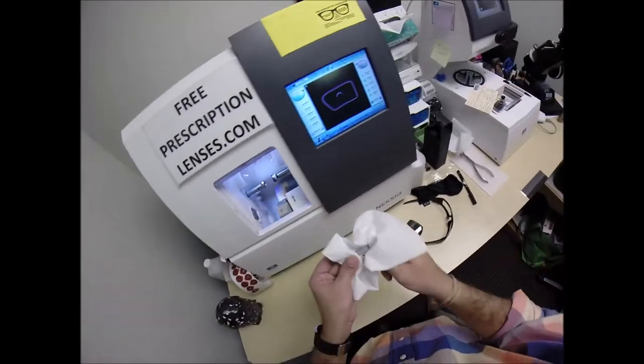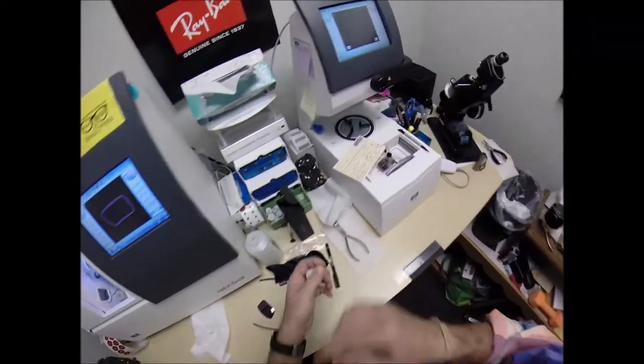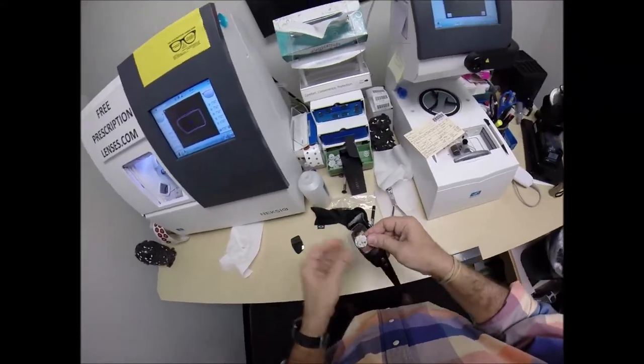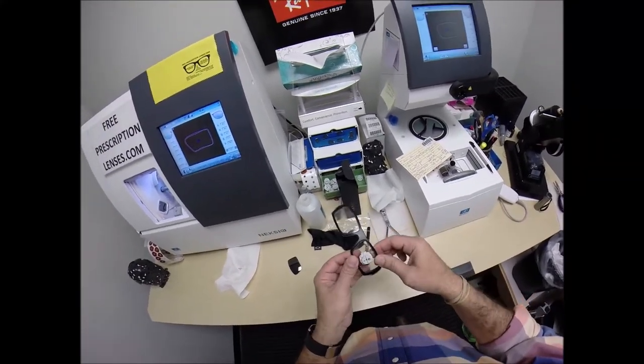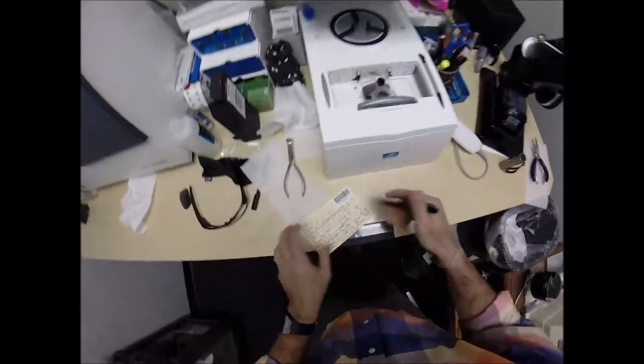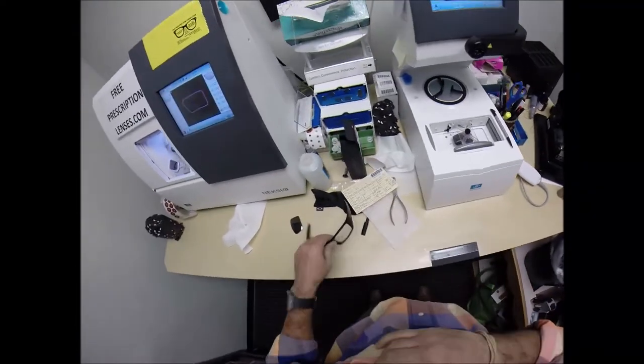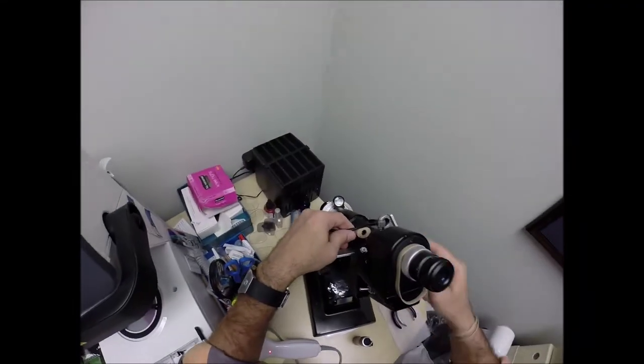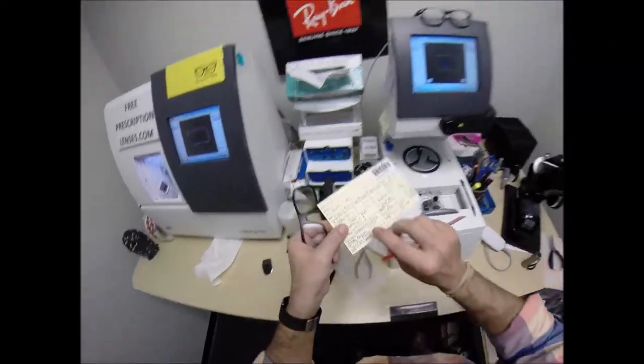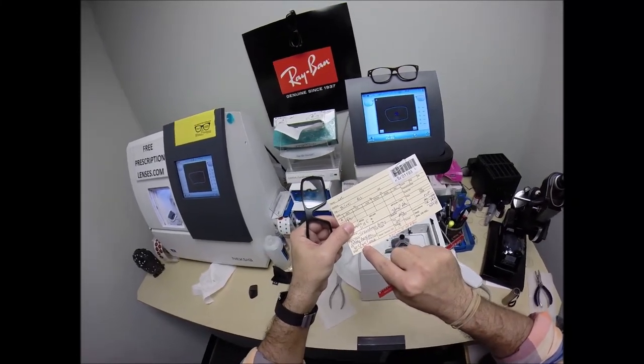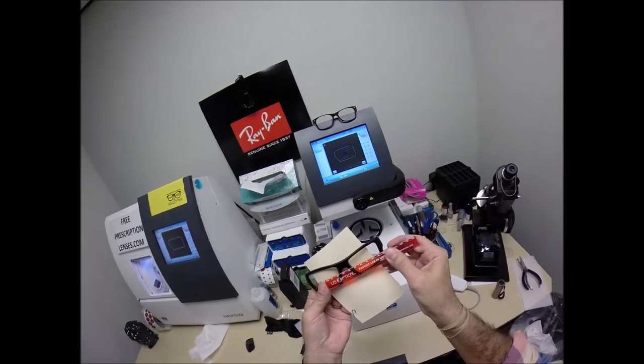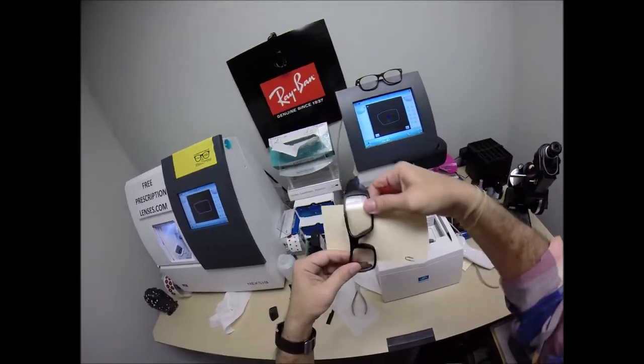Let's take the lens out, dry everything off. Tuck the lens in at the outside corner first, push down at the nose. It snaps right in. That is perfect. Come down here to the lensometer, put it in over that dot. Zero prescription. I'm going to measure your pupillary distance. 32.5 for the right, 31.5 for the left. So that's 64. That is cut perfectly. I want to check your optical center height. There's 19.5 to the bottom there, and that it is.